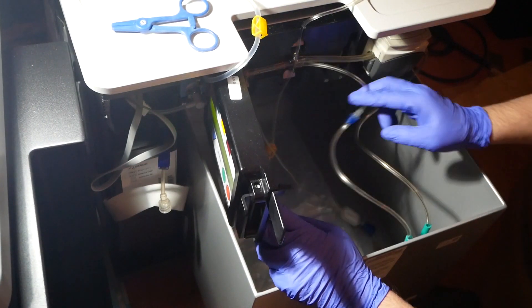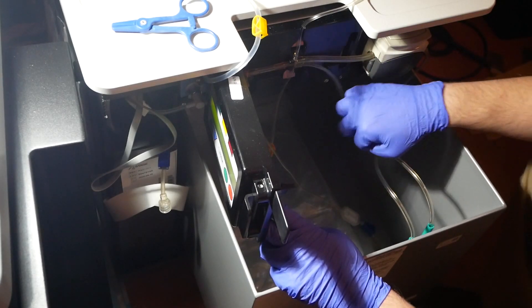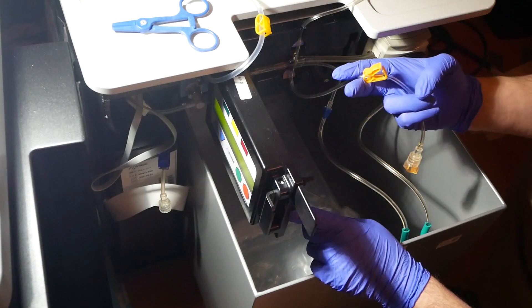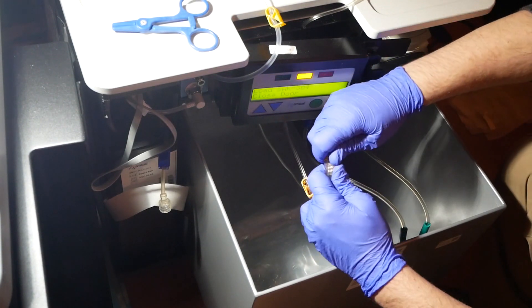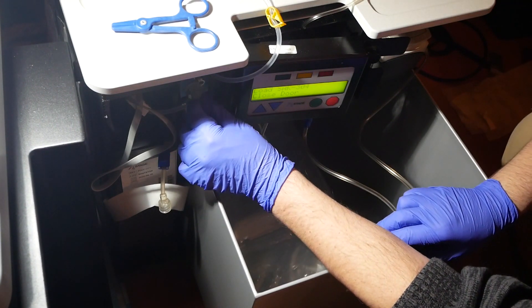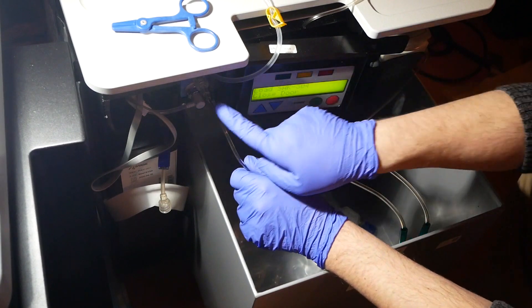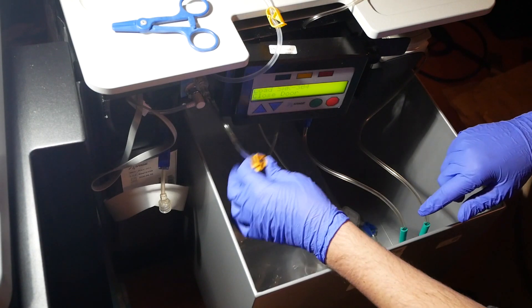This line and this line are ready to go. Now it's beeping at me because it wants me to close the door. We've got the orange connector - take the little plug off the end and screw that into the middle, the reddish-orange one on the left of this little unit. You'll see three connections - this one goes on the middle, leave it unclamped, you're good there.